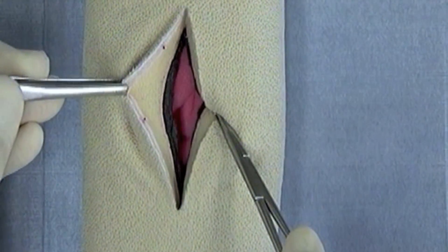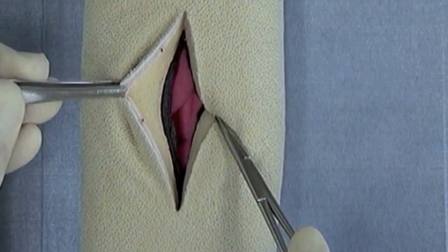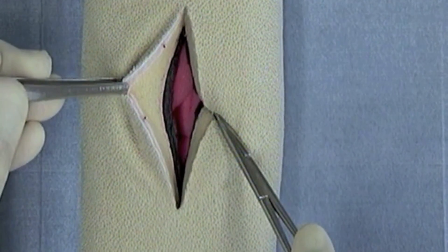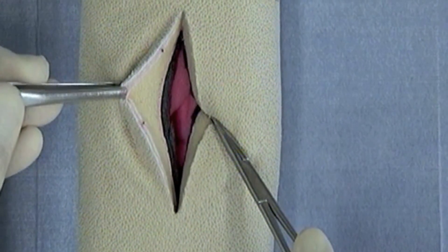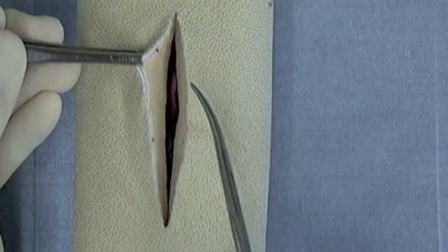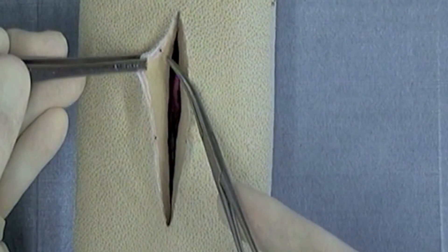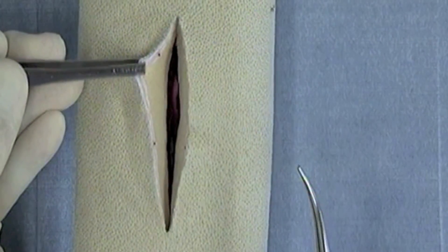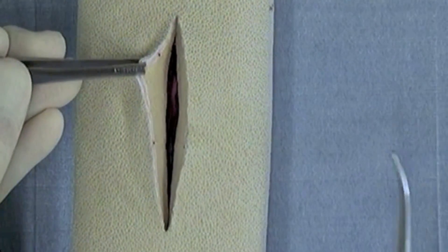Deep within the surrogate abdominal cavity, you can see intestinal contents that we'll talk about in just a second. One unique characteristic of the daisy is that it has these little red latex strands that are facsimiles of vessels.